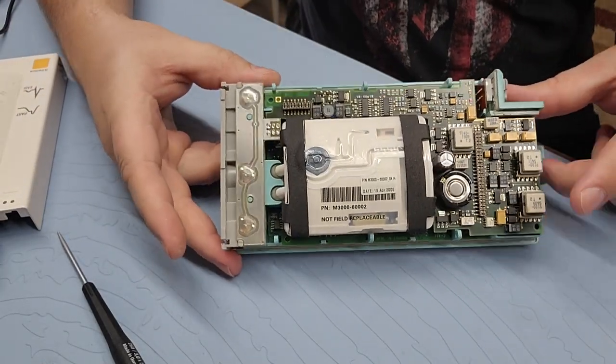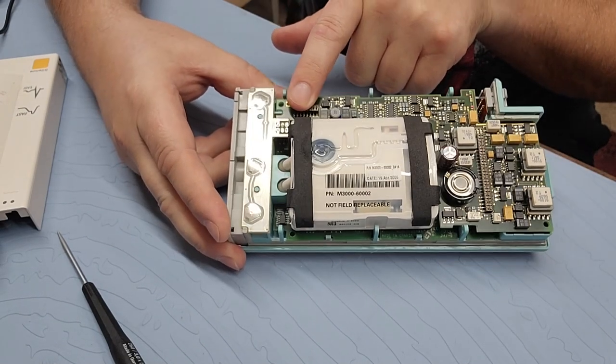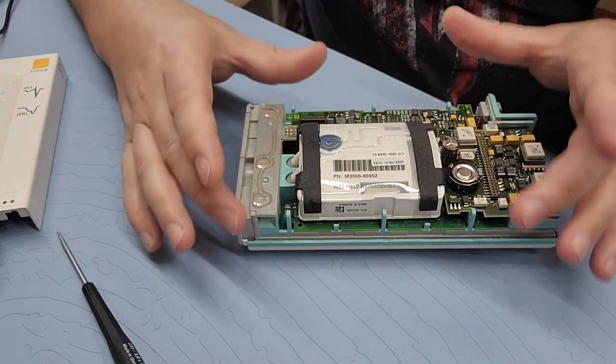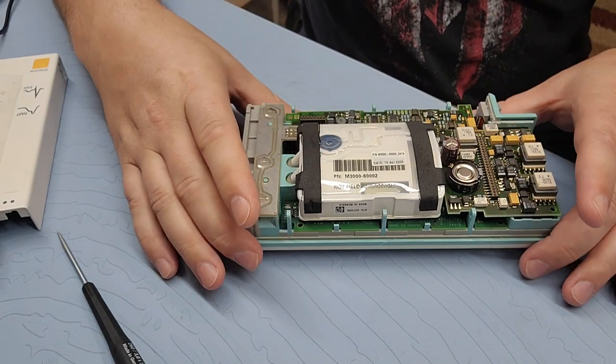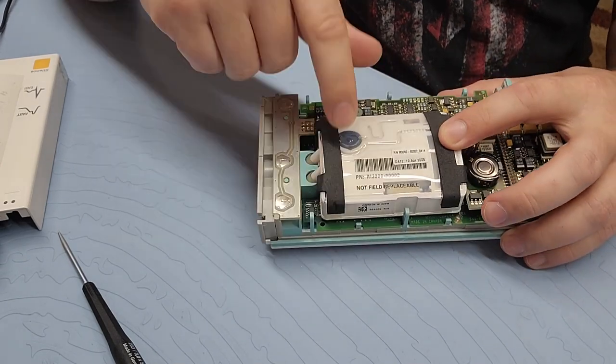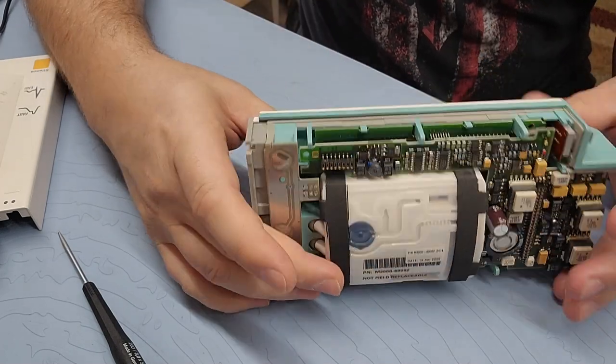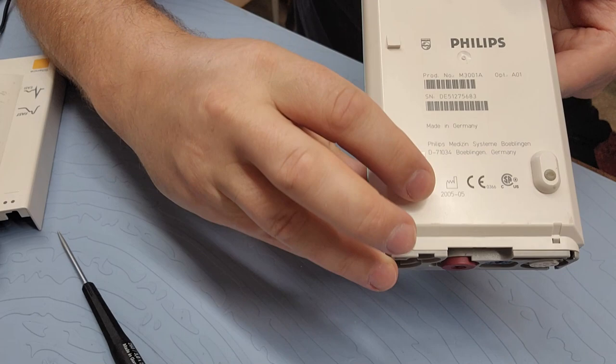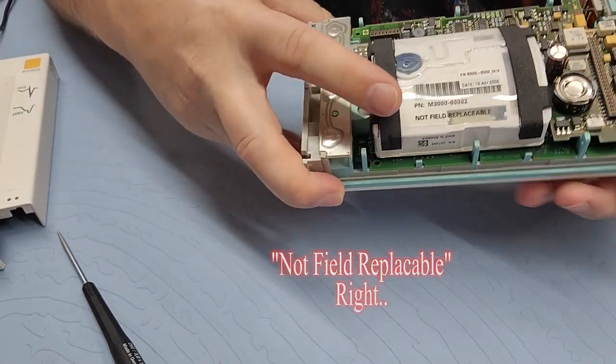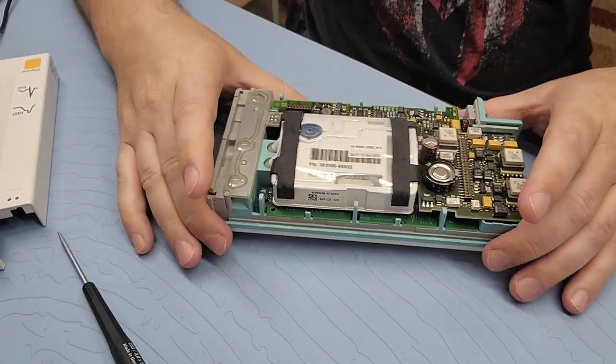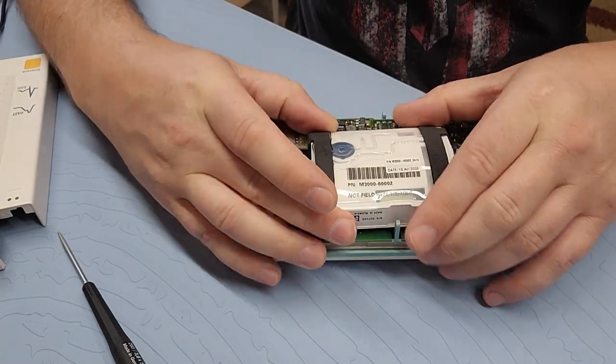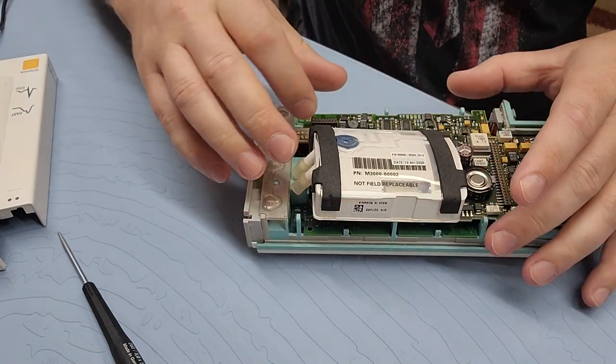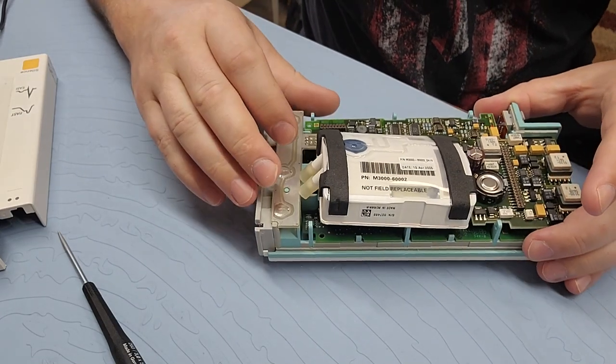Now what you want to be careful of is that these boards have interconnects here and here. So if you take this guy apart, make sure you take the boards apart linear to one another. So kind of rock them back and forth and you pull it apart. So this is the non-invasive blood pressure pump and it's got a plenum, a whole bunch of stuff in there, different valves. You can see, it just kind of pulls out. Be very careful. There's a little ribbon cable right there.